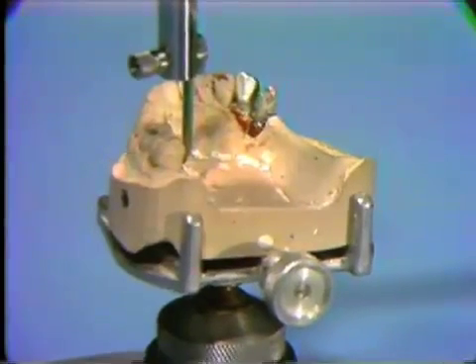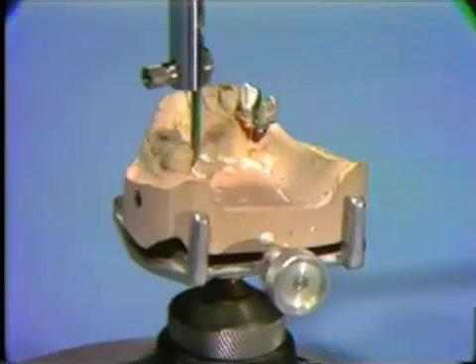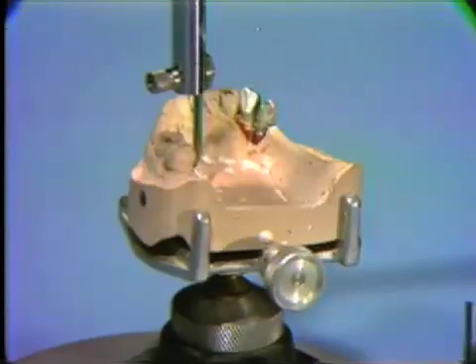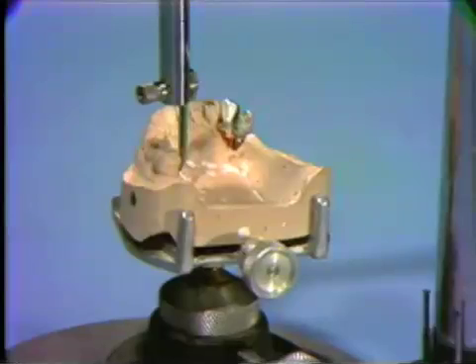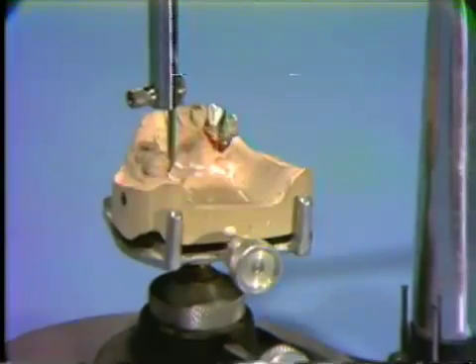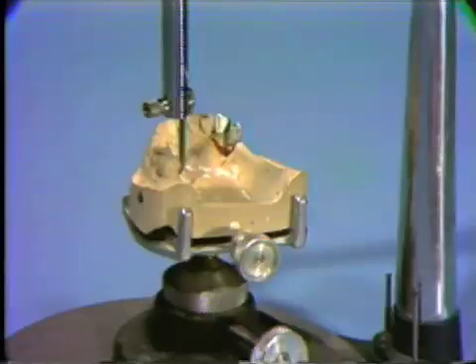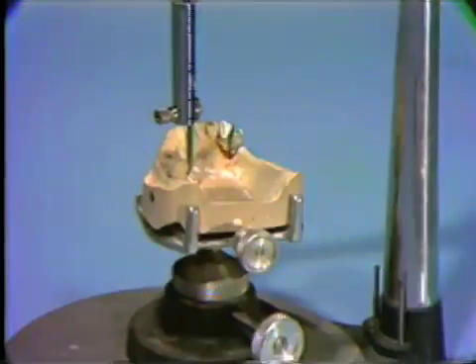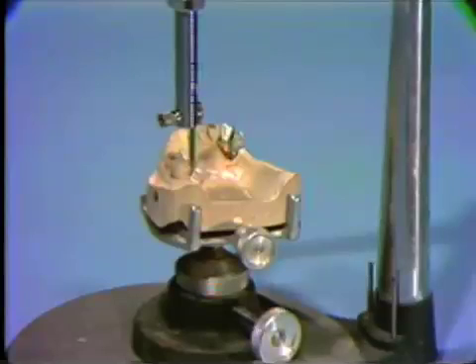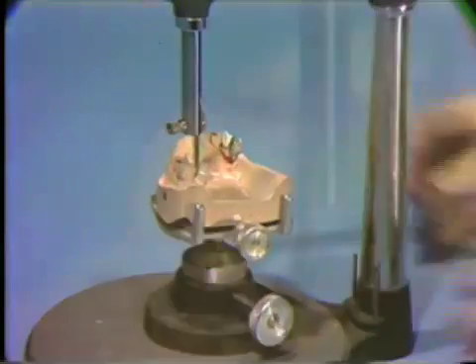After the working cast has been mounted on an articulator, and before the abutment crown can be waxed up and surveyed, the final path of insertion and removal of the proposed partial denture must be not only determined, but preserved. The proposed path of insertion and removal was established during the preliminary survey and design of the diagnostic cast. Any tooth reduction or modification may necessitate a change of that path. The final path is determined by many factors.